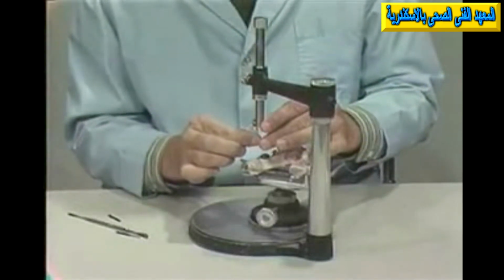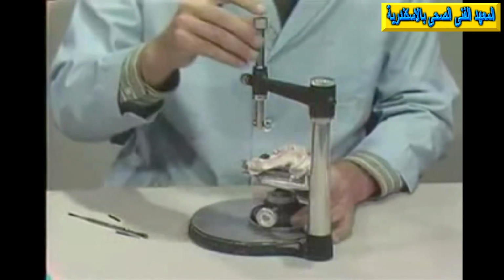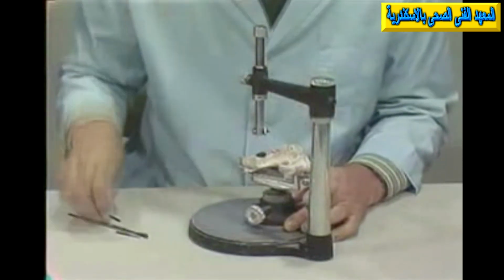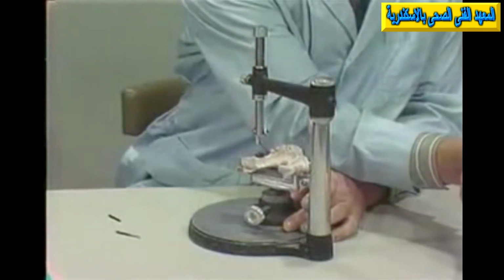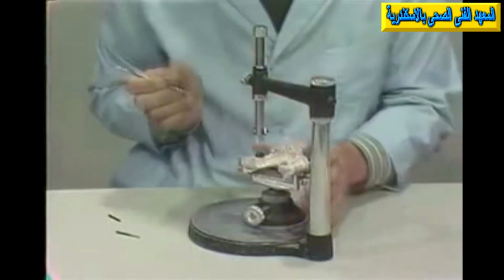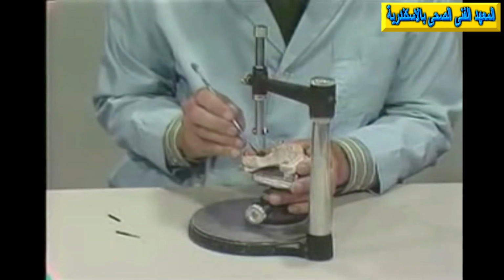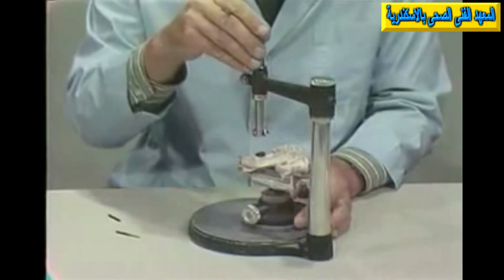Now, we can also do certain other things, and I mentioned the use of inserts before. There are a variety of specialized little inserts. They usually consist of a sleeve, an internal sleeve, and a little insert which fits into this. Now, in this particular case, we have an insert here which happens to be an Engelhardt semi-precision attachment. The type of attachment doesn't make too much difference, but just for demonstration purposes, I'll demonstrate here how we might place this into a wax pattern. If we soften the wax and we have chosen our path of insertion to be what we want, we can actually place the insert right down into the wax pattern.